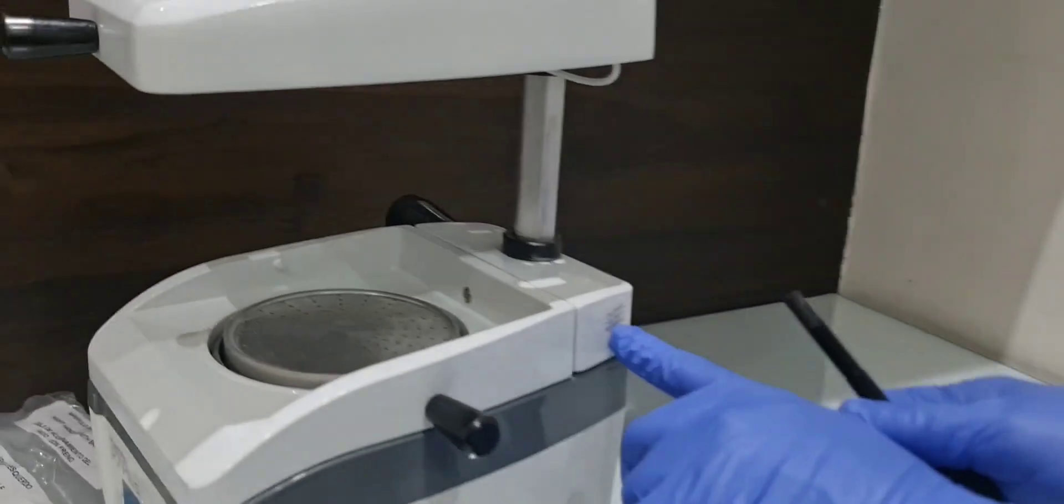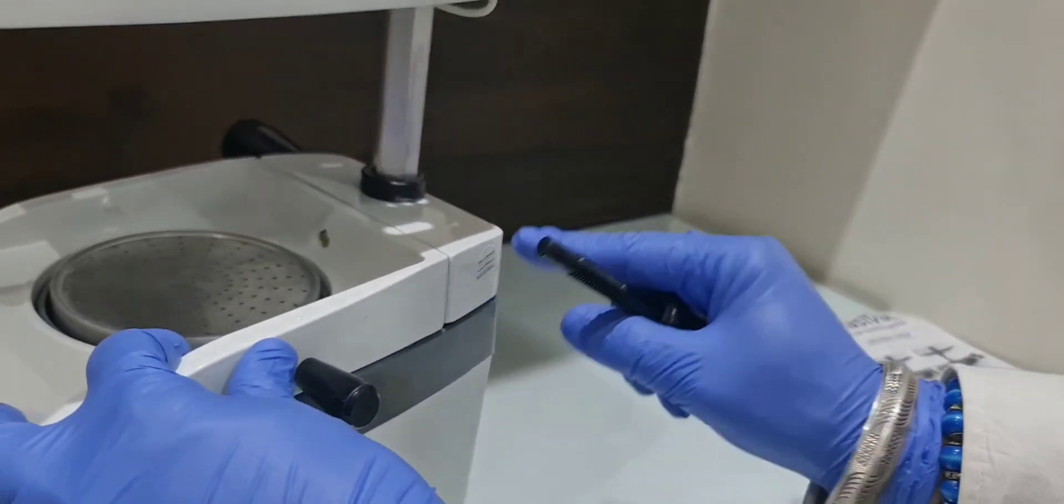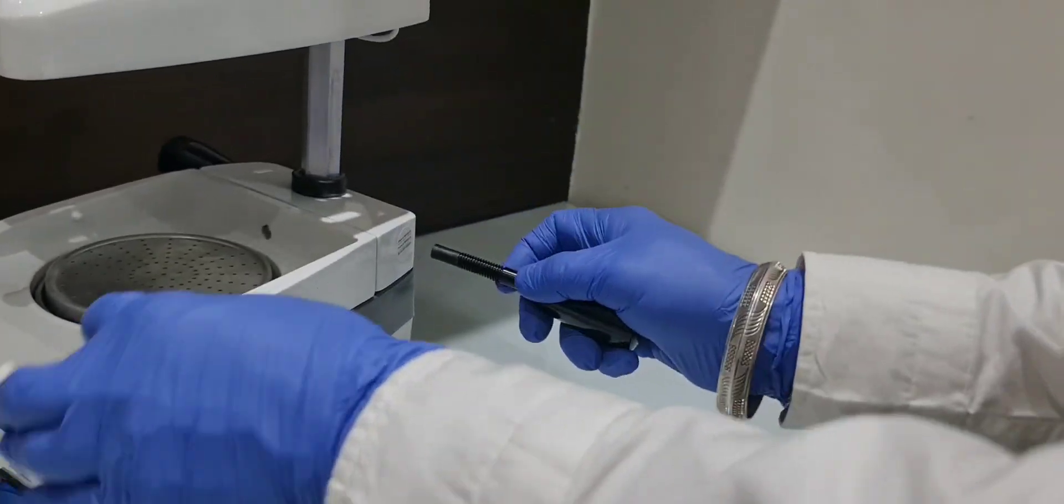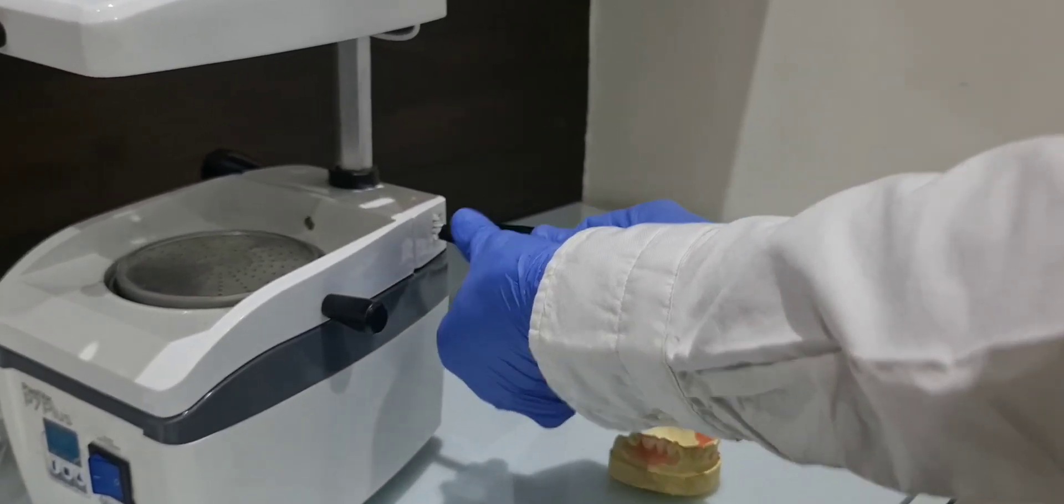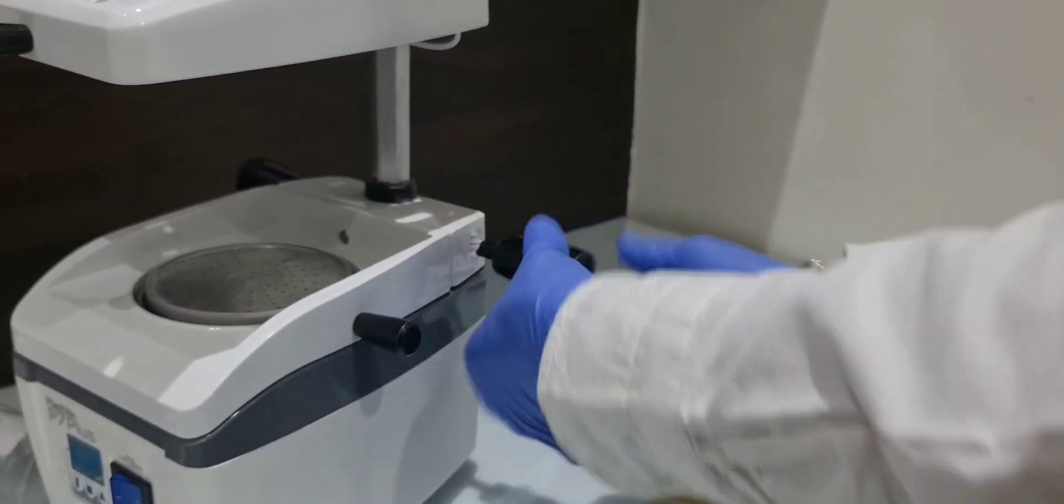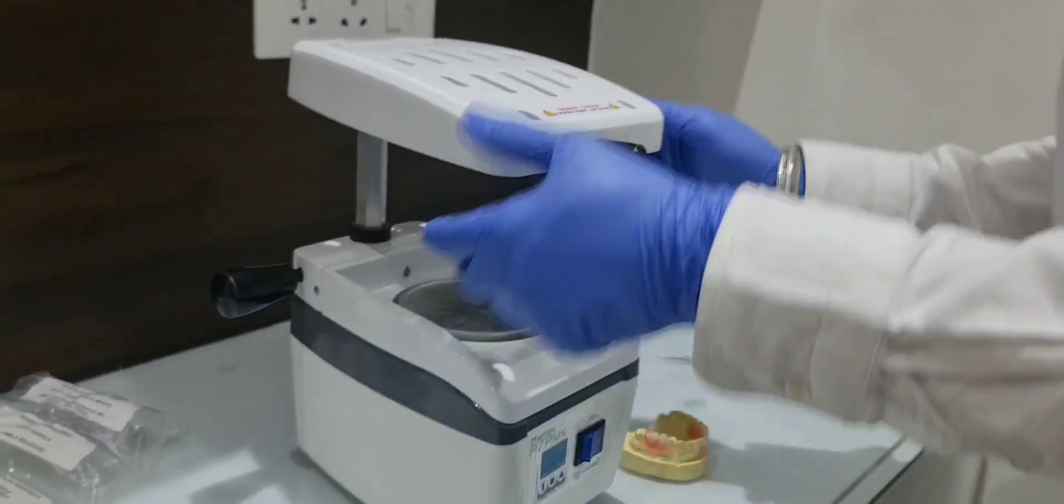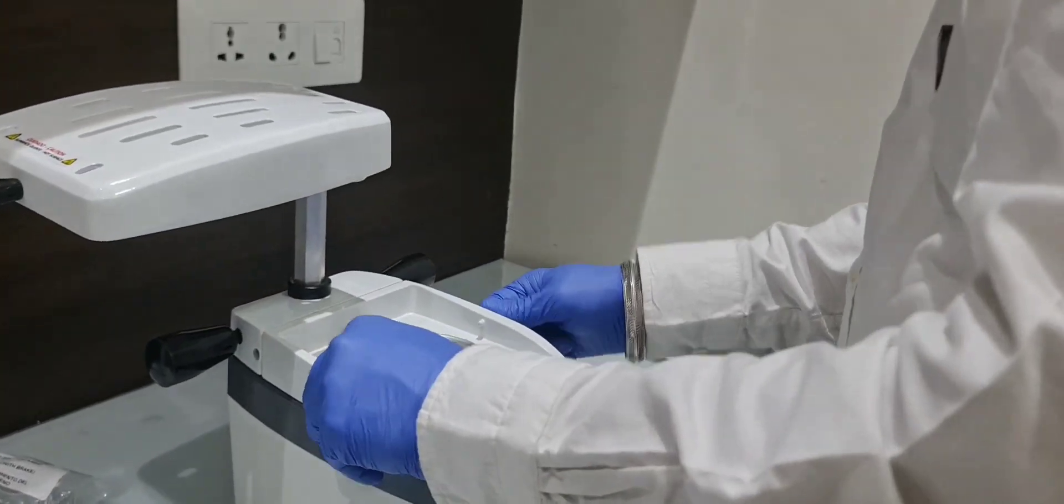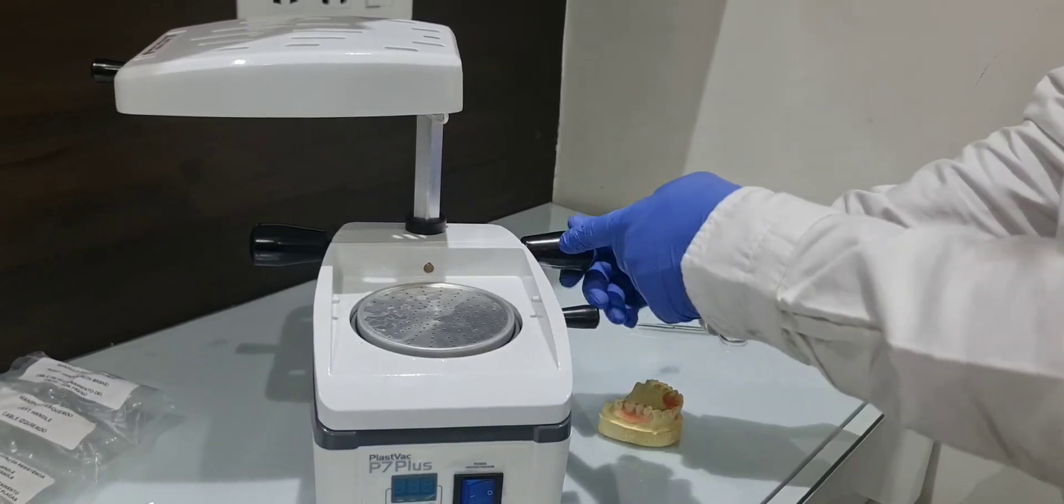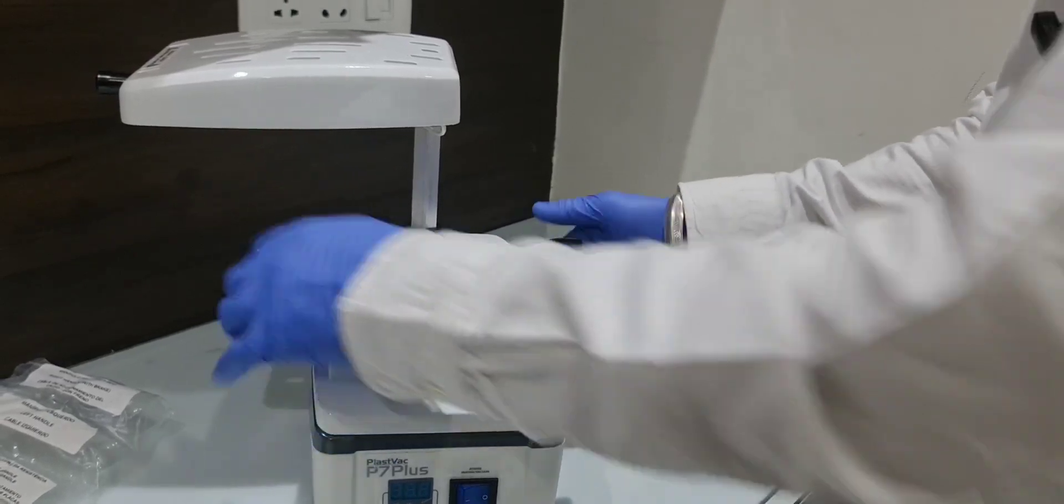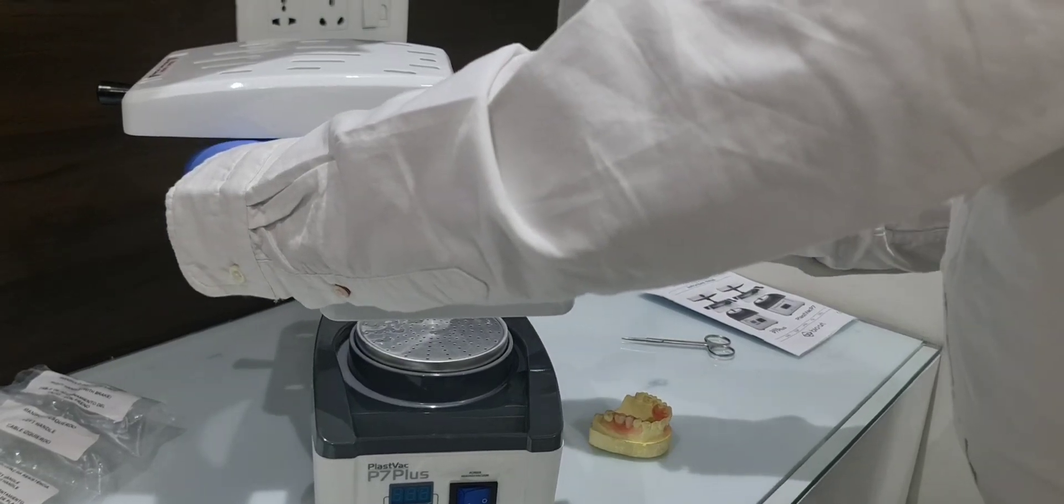There is a seal brake and handle, so this is for the brake also where you want to stop. This is the brake. If I tighten it, it will not move. Slightly loosen it and tighten it. If you loosen it, it will come automatically down, so tighten it.